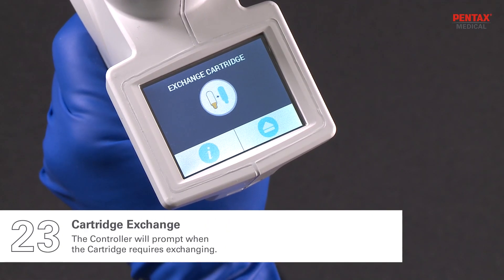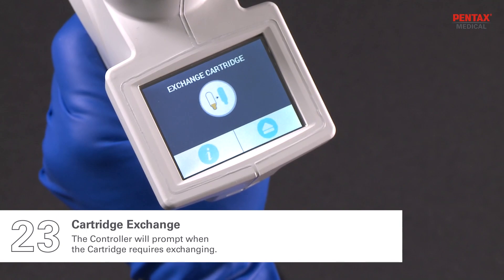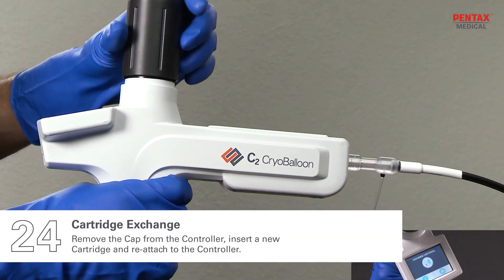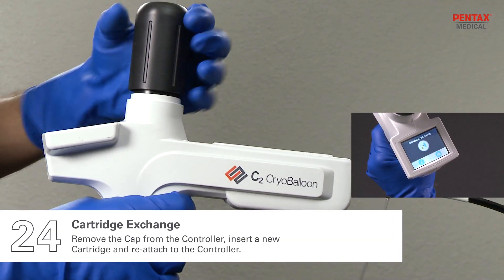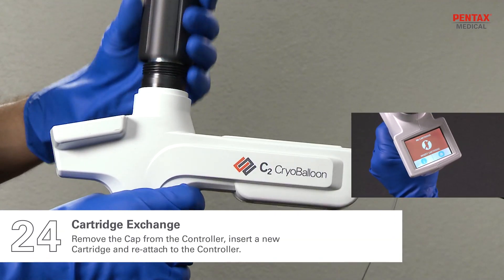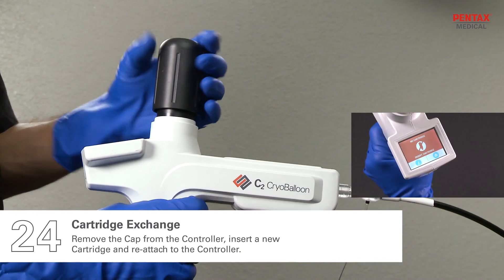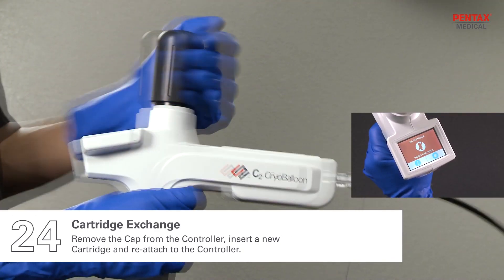The controller will prompt when the cartridge requires exchanging. Remove the cap from the controller, insert a new cartridge, and reattach to the controller.